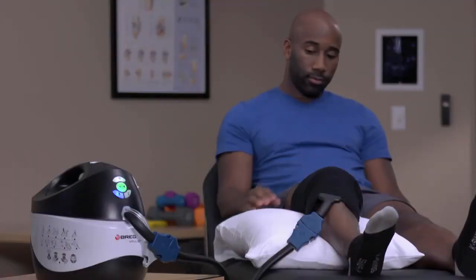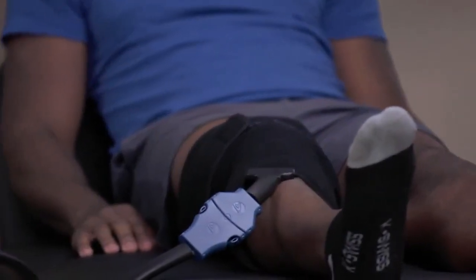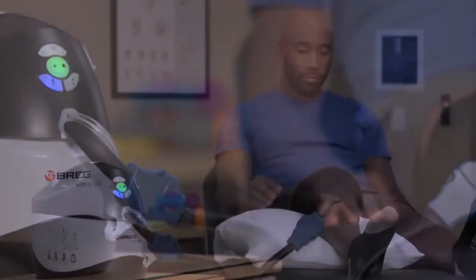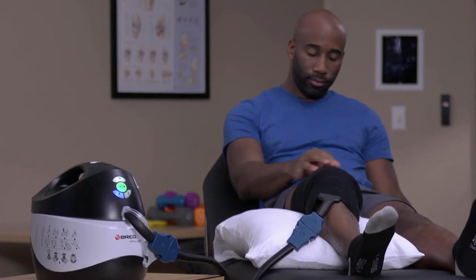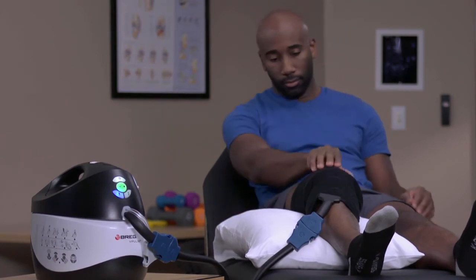The sounds from the V-Pulse are the compression cylinder cycling off and on and the motor circulating the water. You should feel the cold water begin to circulate. It may take several cycles until the pad is fully inflating and deflating.